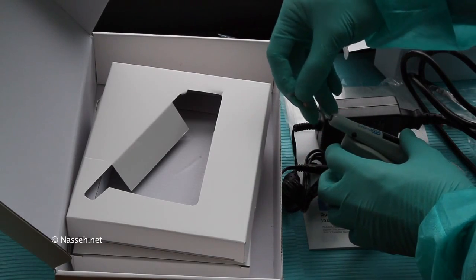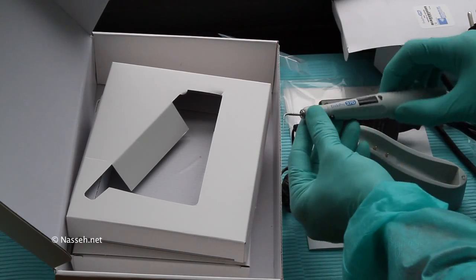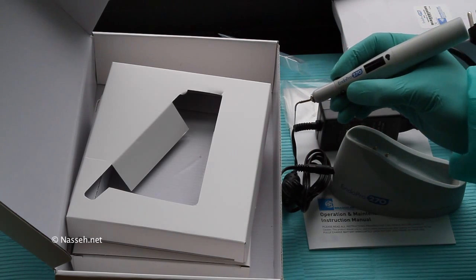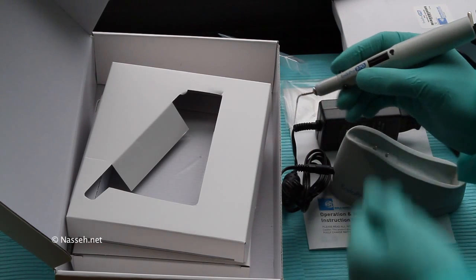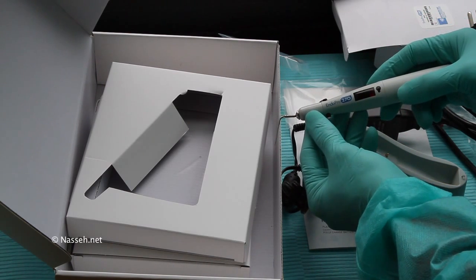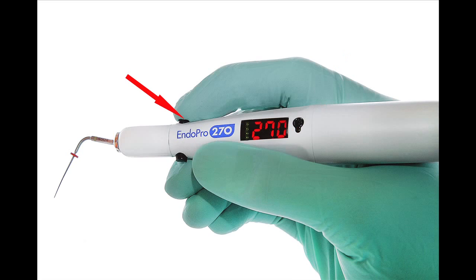The tip is installed easily. You press the button and hold for a few seconds and the unit is on — that's how you turn on the power. These green bars show you the power level for the battery. This little black button, both on top and the bottom, is activated to reach the desired temperature.